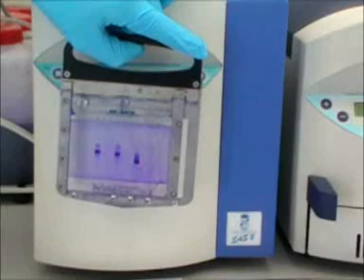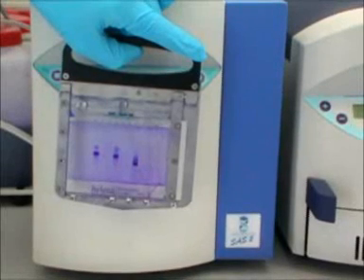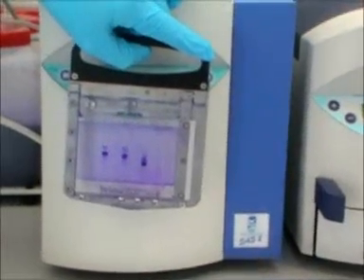The stained and dried gel film shown here is an acid gel with various haemoglobin variants.